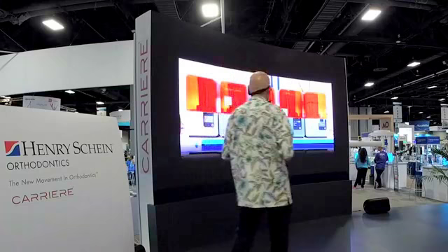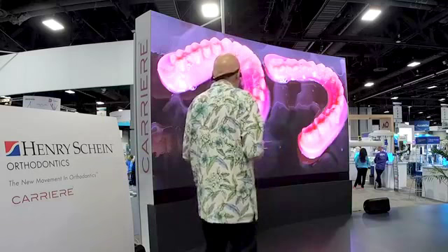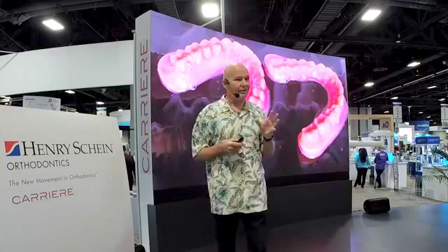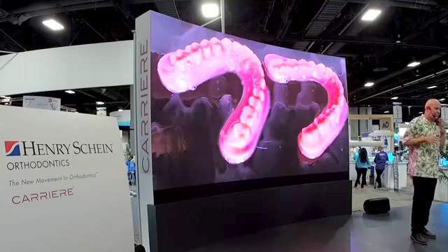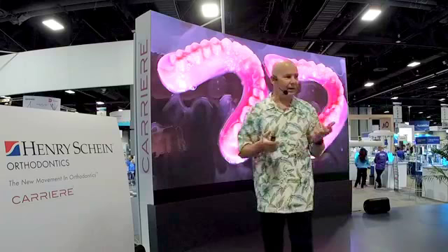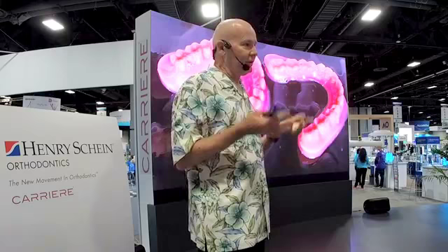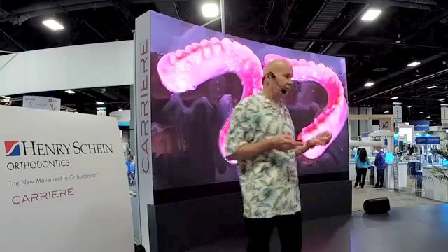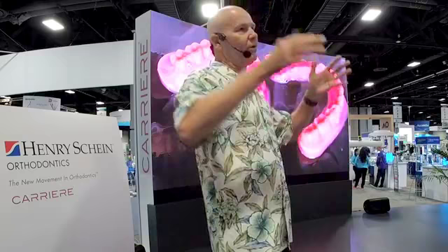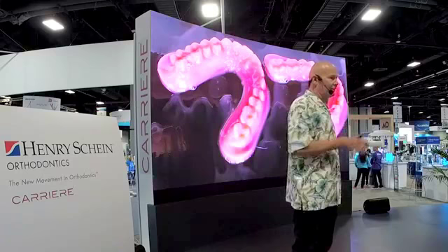This is what the models look like when they come out. You can't use them when they come out of the resin — there's a post-processing step that involves washing the excess resin off with ethanol. Formlabs has a cool ethanol bath that vibrates to get things cleaned up faster. Then they have to go in a post-cure oven, which is primarily ultraviolet light that cures any uncured resin — some ovens have a little heat as well which speeds up the process. You have to go through the post-cure in order to use the models, otherwise they just fall apart. That process is in addition to the print time, so even if print time is 20 minutes, you've got another 15 or 20 minutes on the other side before your lab can actually use the models.